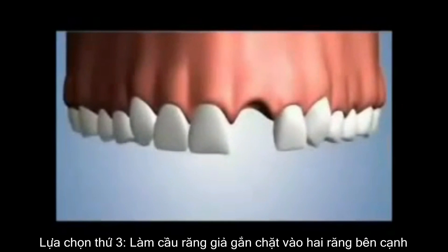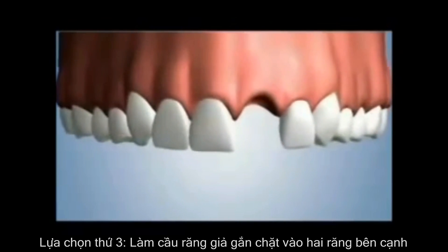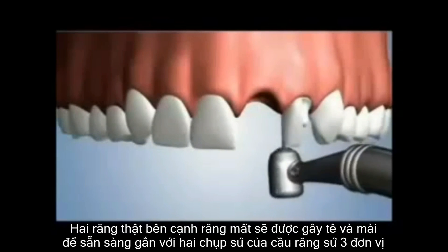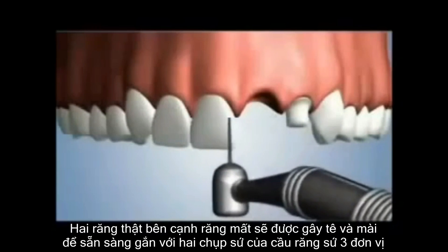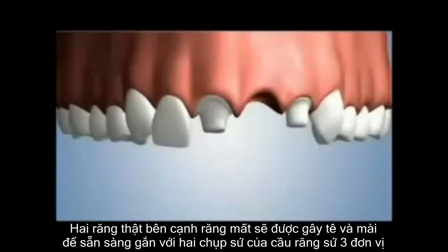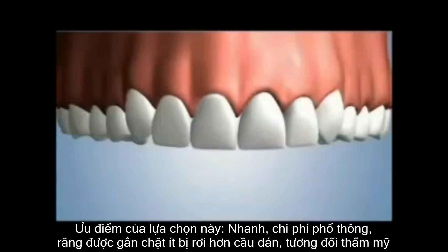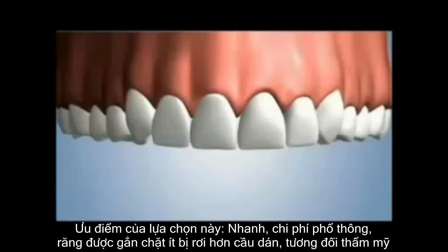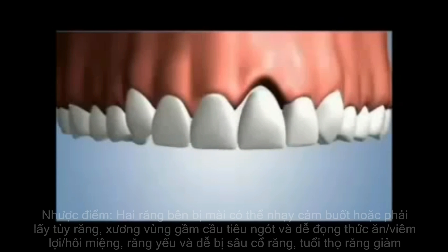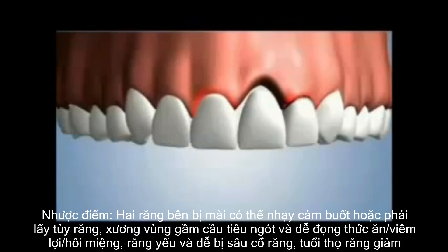The third option is referred to as a fixed bridge. A high speed drill shaves down a significant amount of the neighboring teeth's natural structure. This prepares the teeth for the fitting of a fabricated three unit bridge that is cemented in place. However, bone loss soon occurs, and plaque buildup is common below the margins of the crowns.